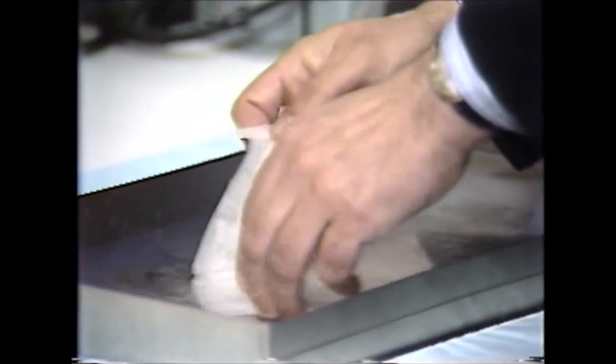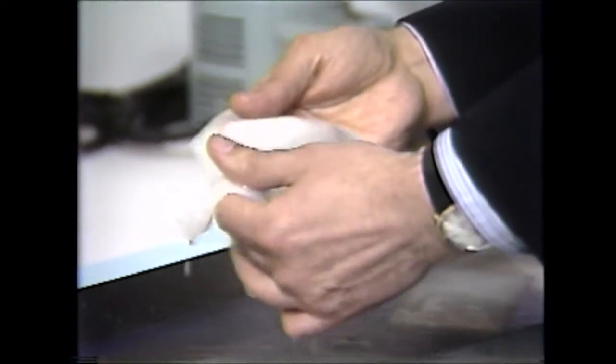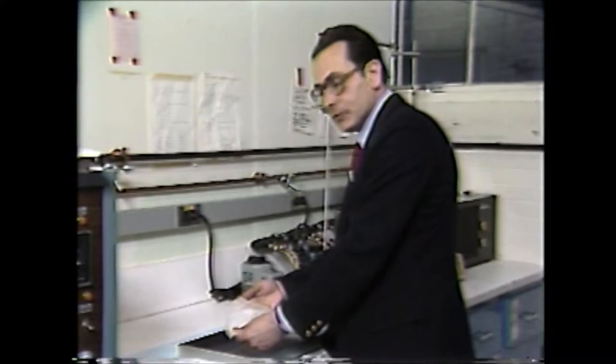This is a segment of the completed artificial skin. This is the form in which this material is handed over to the surgeon for grafting of wounds.